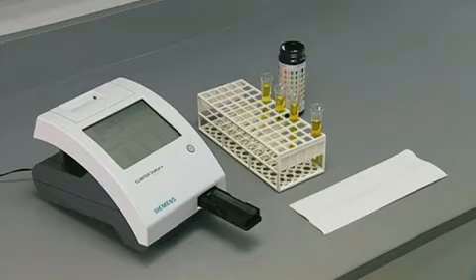To begin the quick strip test have the test strip, urine sample, and a paper towel ready.